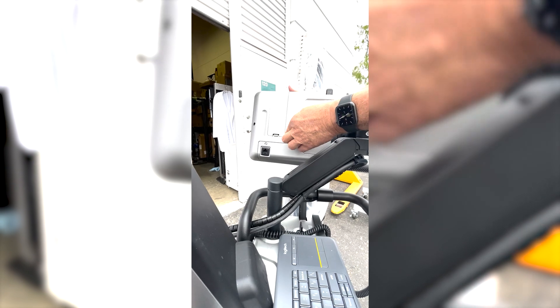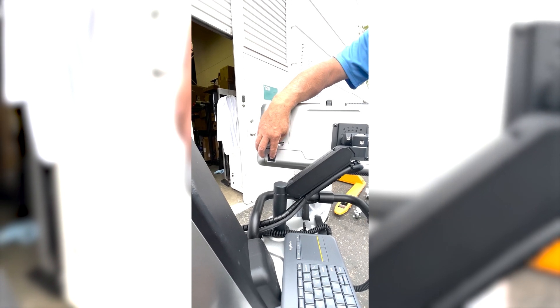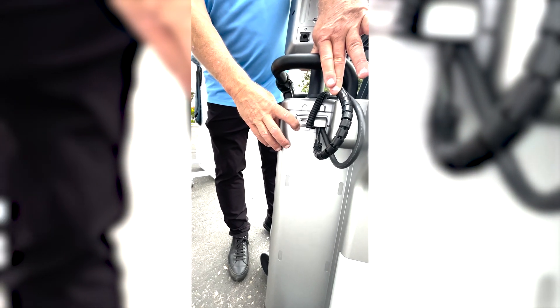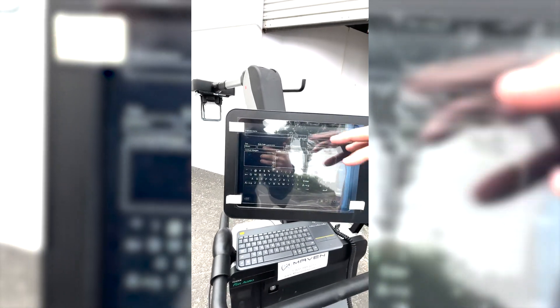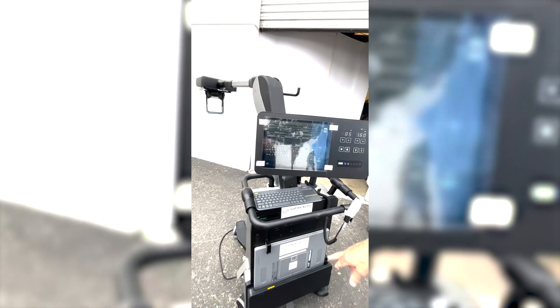If all else fails and Wi-Fi is not working, we do have an RJ45 jack here. And finally, on the back side, we also have two USB ports for attaching a USB CD drive or whatever else you want. To recap: this is the Fuji dashboard, Fuji portable Acro, DR panel, and finally we have the battery down here.